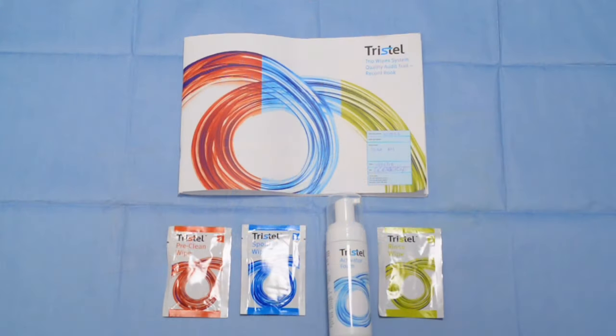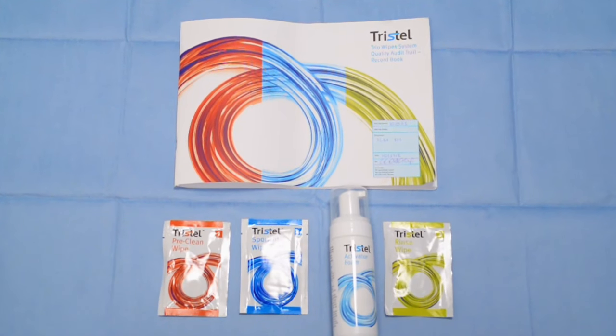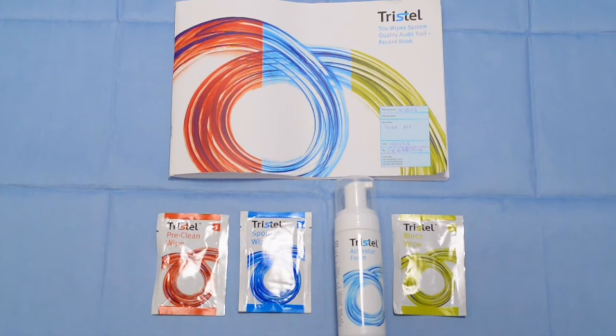The CMAC video laryngoscope blades are reusable. We use the Tristel Trio wipe system, and this is all the equipment that you need for that.